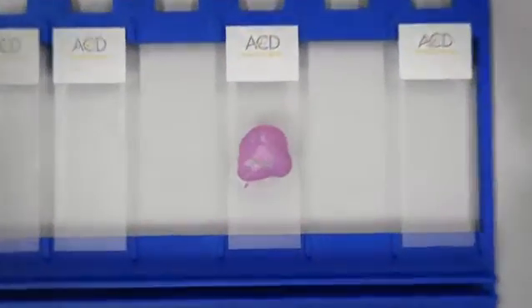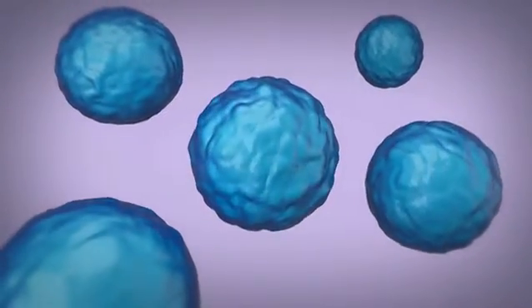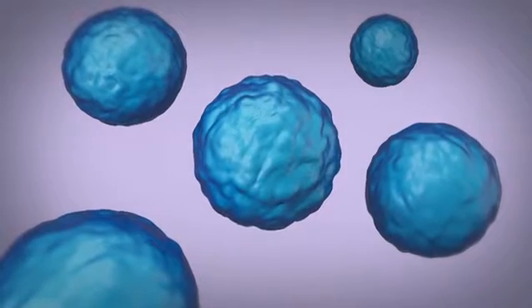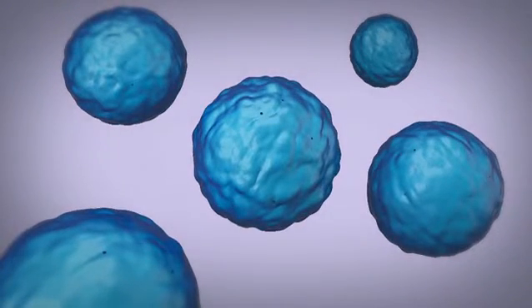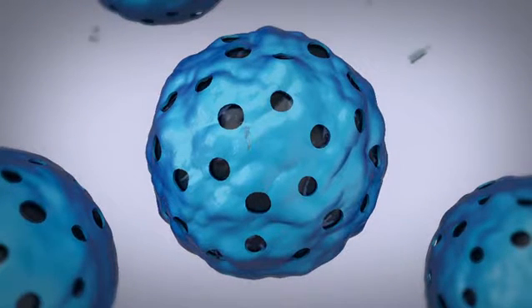Let's take a closer look at the cellular level. The first step is fixation, followed by permeabilization. Now the RNA molecules in the samples are accessible, the RNA-Scope probes in situ go to work.